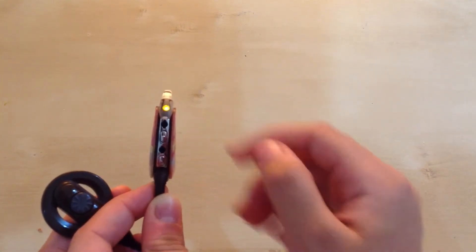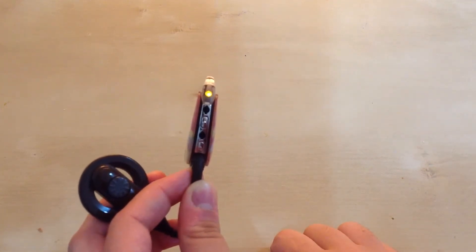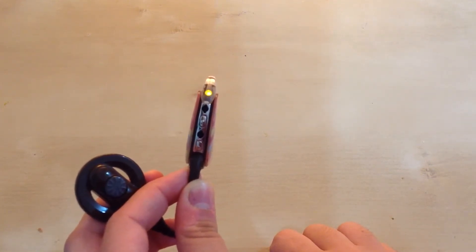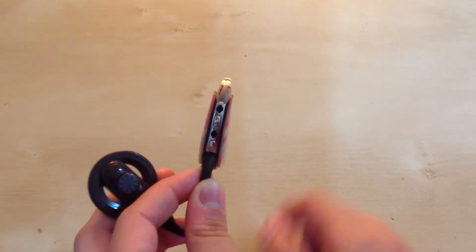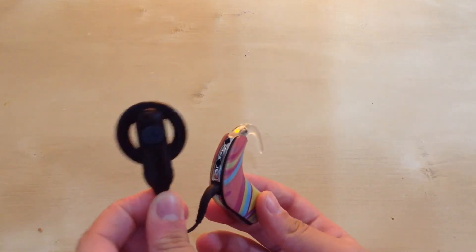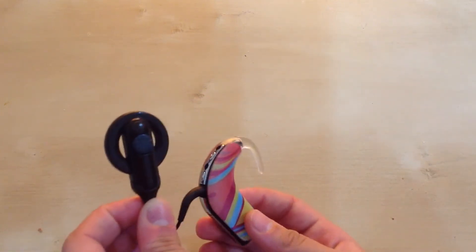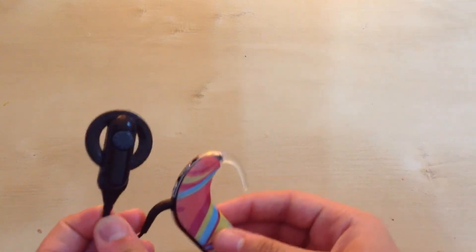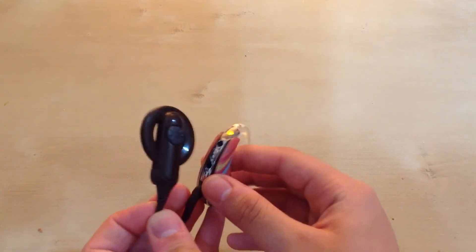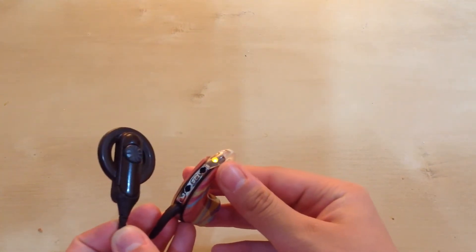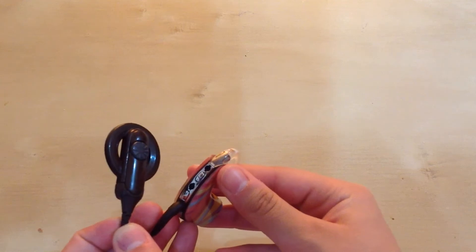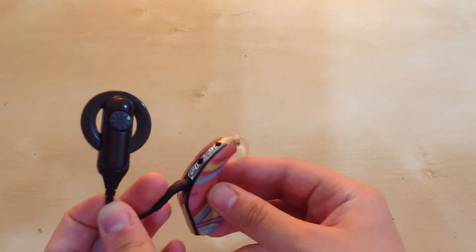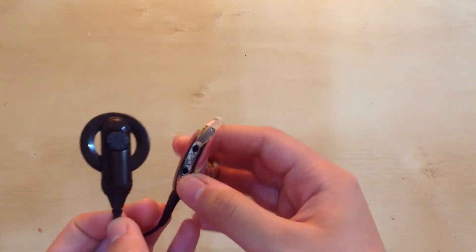And then you see a green light. Now there's a blinking orange light, and that's only because the cochlear implant is not on the person's head yet. Once that orange dot stops blinking, then you know it's on their head. When the orange dot is blinking while on the person's head, that could be because the battery needs to be changed.